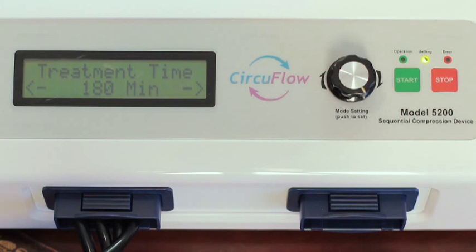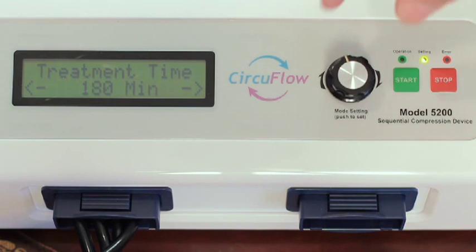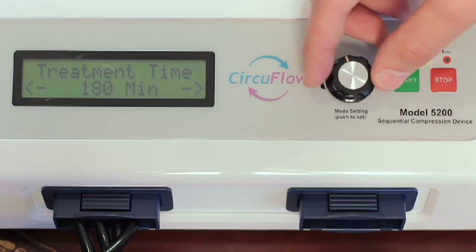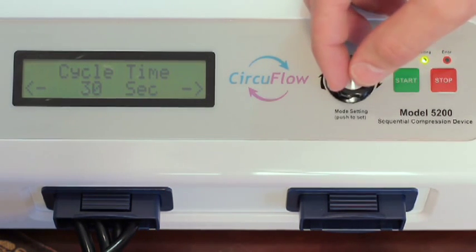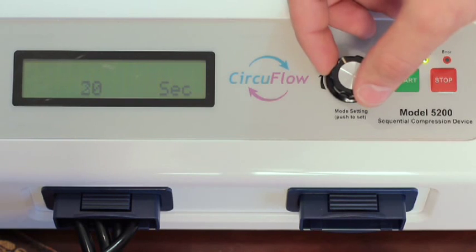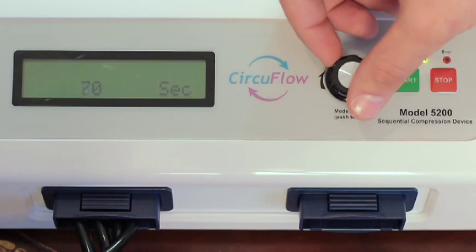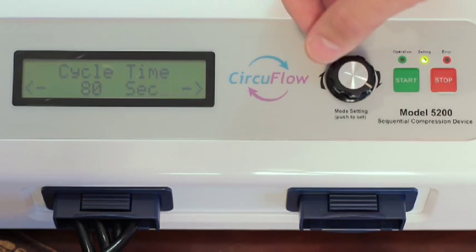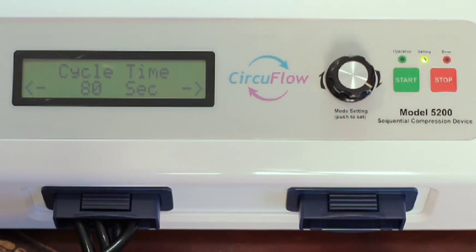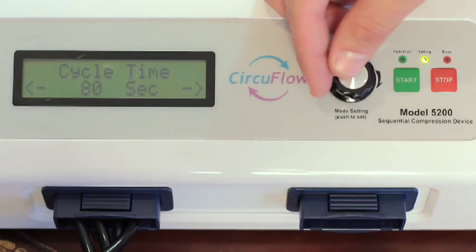To set the cycle time, turn the shuttle knob to and select the parameter. Turn the shuttle knob to select the correct amount of time, which can range from 20 seconds to 80 seconds in increments of 10 seconds. Press the shuttle knob to confirm the cycle time.